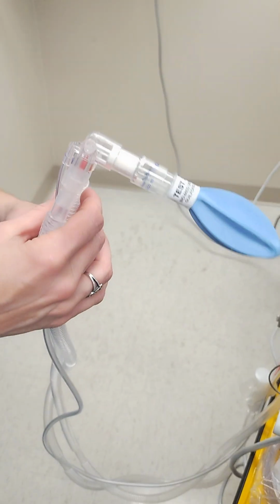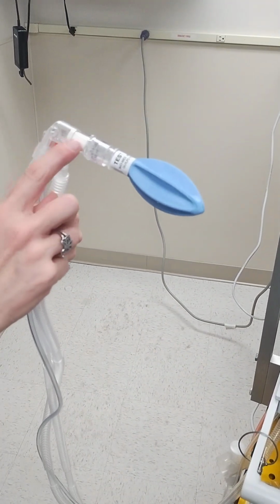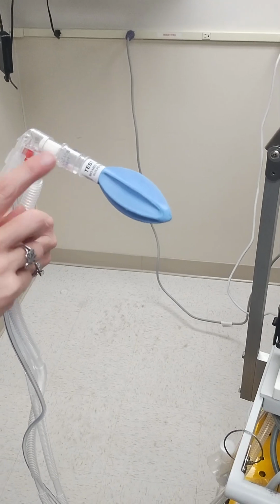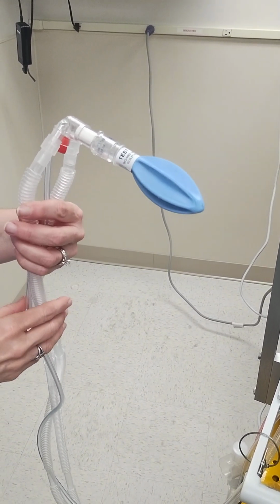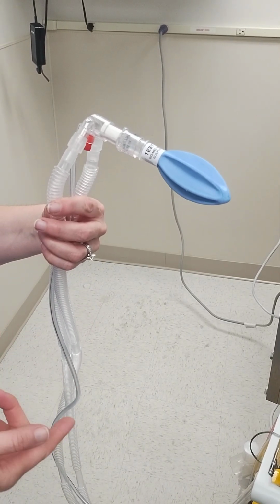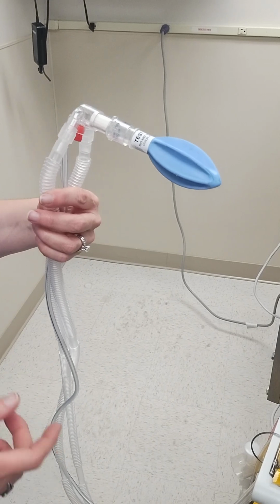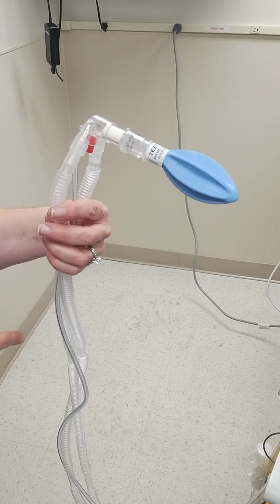Okay. This is our ventilator circuit, and we see here that we have a baby HME and our test lung is in line. So if you know that you're picking up an intubated patient, I highly recommend that on the way to the referring facility, you plug in your air and oxygen into the outlets on the rig.